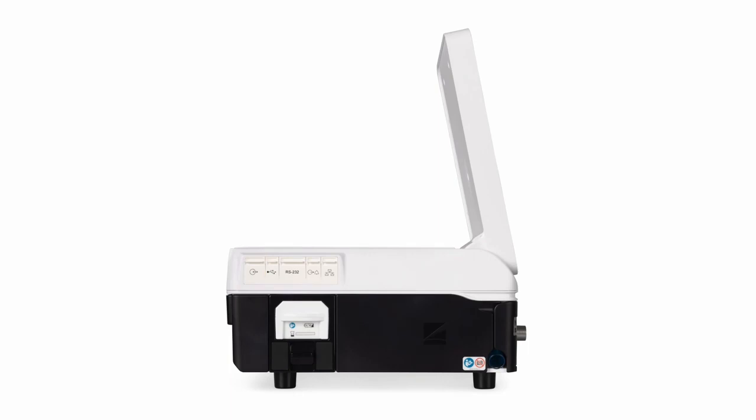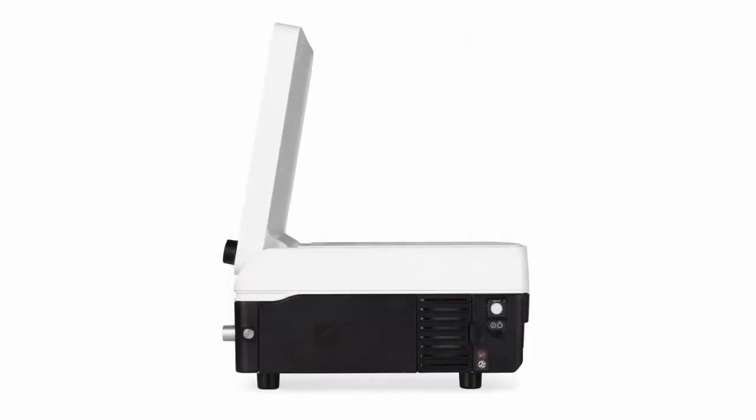Below the connectors is the extended battery, which can be easily removed by pressing down on the battery latch and sliding the battery out. On the right side of the ventilator is the power on/off switch and the air intake for the blower. Air going to the internal blower first passes through a dust filter, then through a HEPA filter prior to entering the blower. The dust filter and HEPA filter are situated behind the air inlet cover.